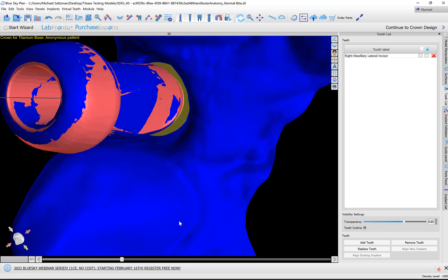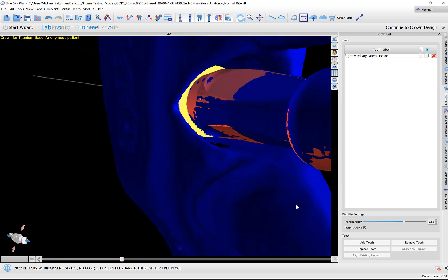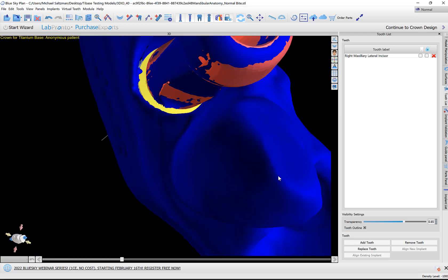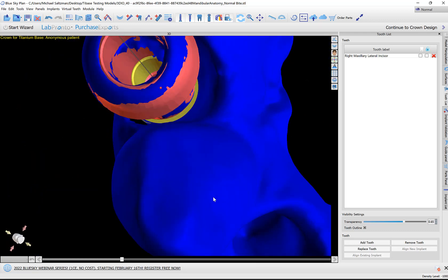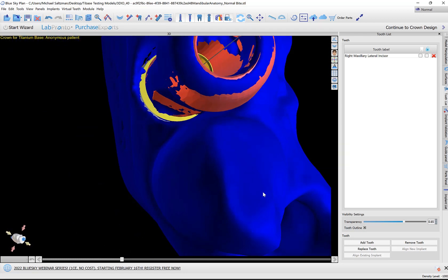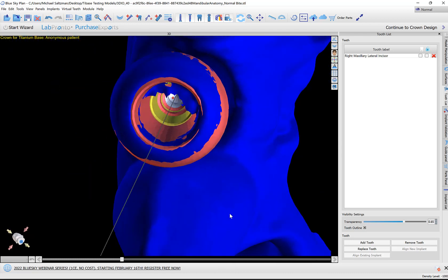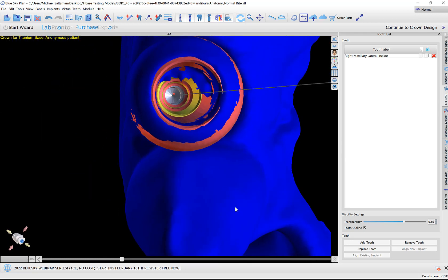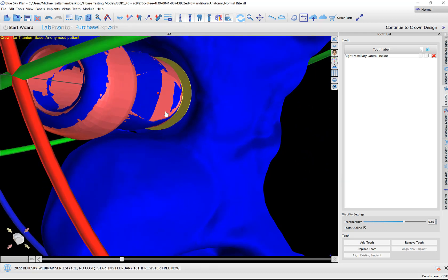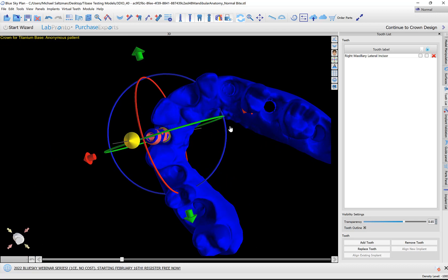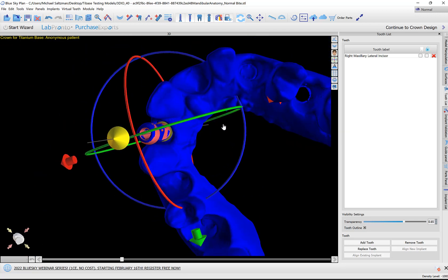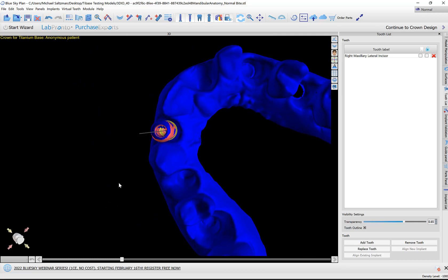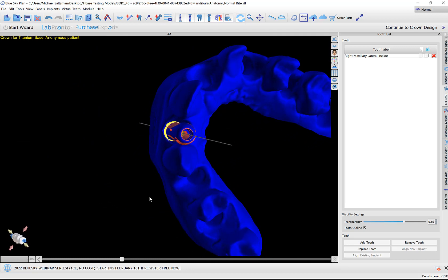If I take a look at the flats of that scan body, I can see the scan body that we aligned to the model is visible on all three sides. If we did want to modify the placement, we could simply click on the scan body, use the widget to move in any direction or rotate. You could also use the arrows on your keyboard to nudge the scan body in any direction.